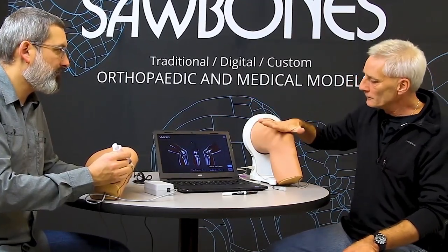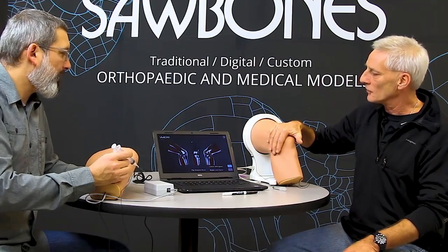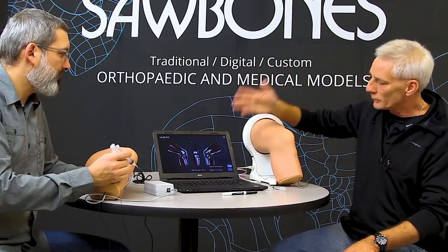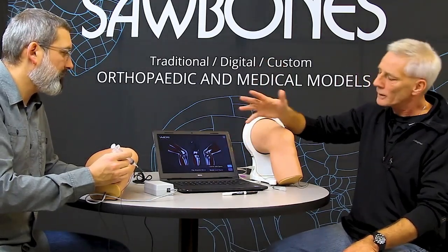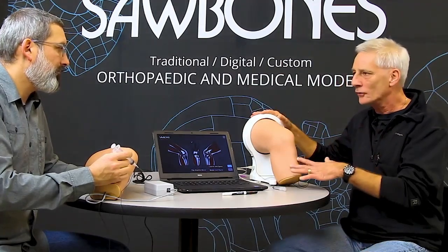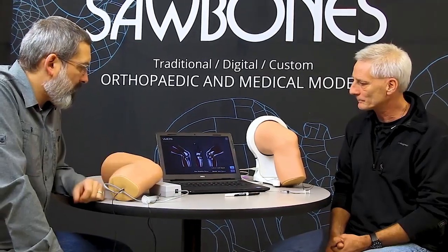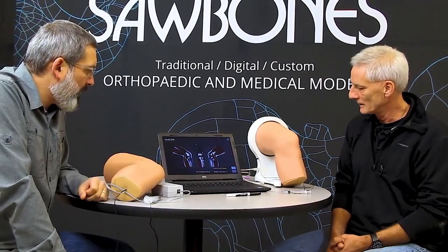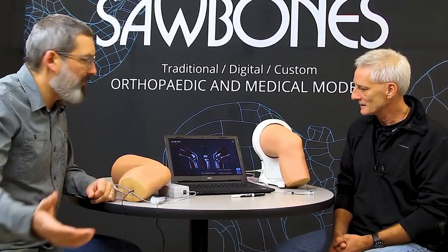This particular system we've tried to keep basic and simple — we've preloaded it onto this little Dell laptop. The system comes all inclusive: plug it in and go. I'm excited for this. When are we shipping — is this coming up in months?